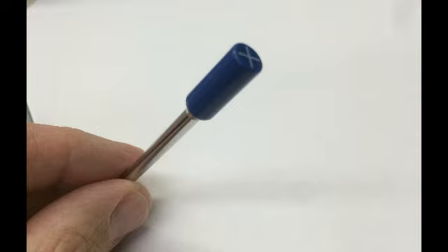That's one of the main advantages of this type of detector—it's very small in size but still gives you a good signal. So let's look at how these diodes work on a fundamental level.